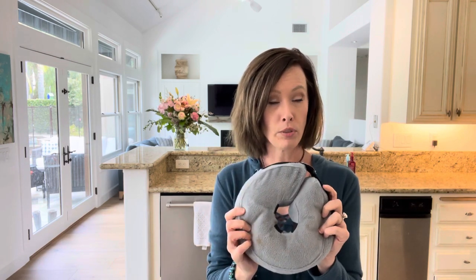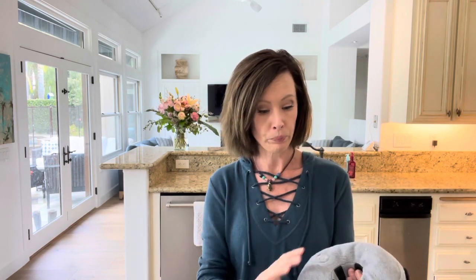One of the first super helpful things for a dog with mega esophagus and a feeding tube is their little neck hug pillow. I have a few of them in different sizes — stuff I've collected over time. It's always a good idea to have at least two so you have a backup if it gets dirty or gets a hole in it. These are inflatable with a little pop-out valve. We call it his 'hat,' but it goes around their neck and helps hold their head up when they lay down so they don't regurgitate as often.